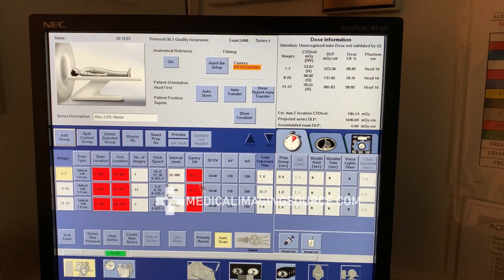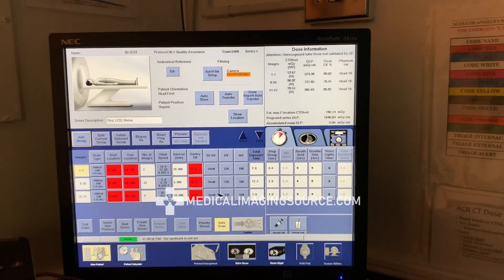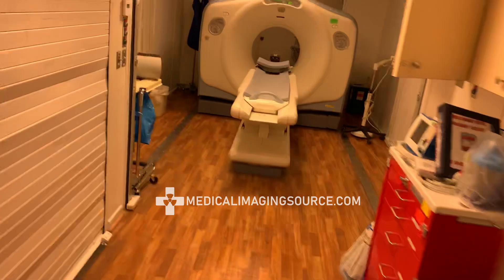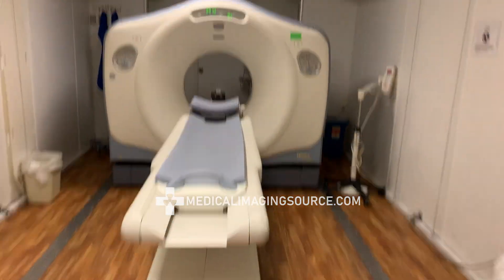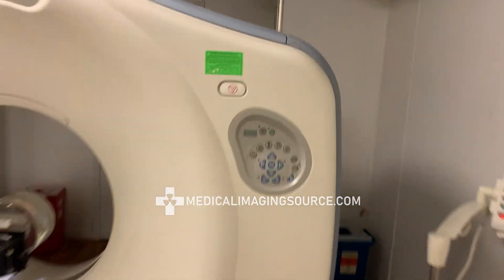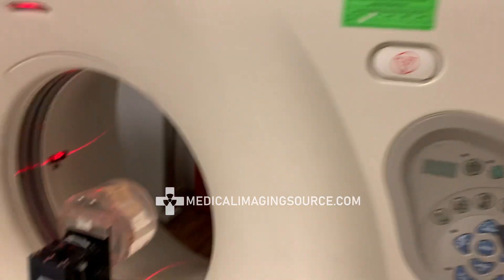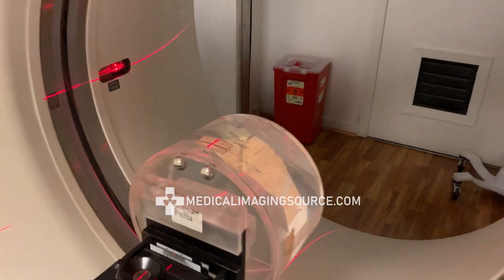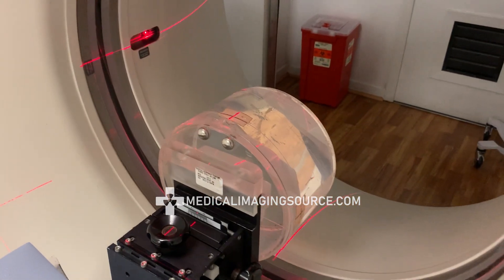If you see red squares there, that means you need to landmark. So let's go inside the scan room, open our laser light button, and that'll power on our lasers. It looks like we're a bit off.